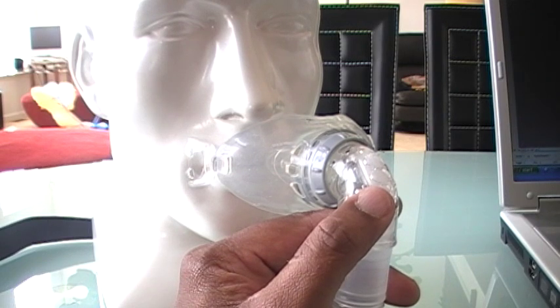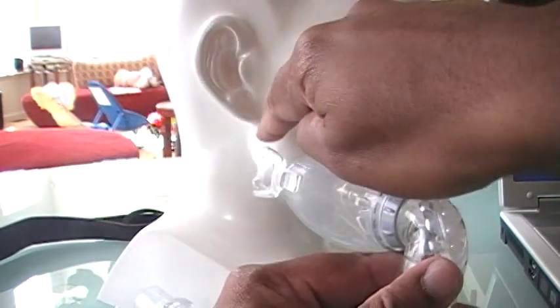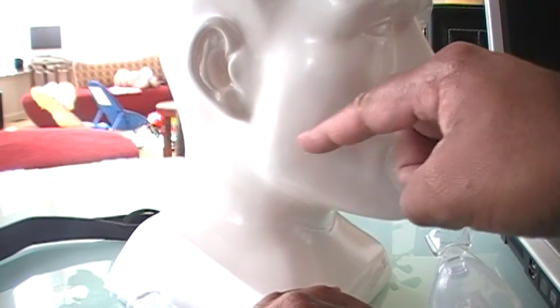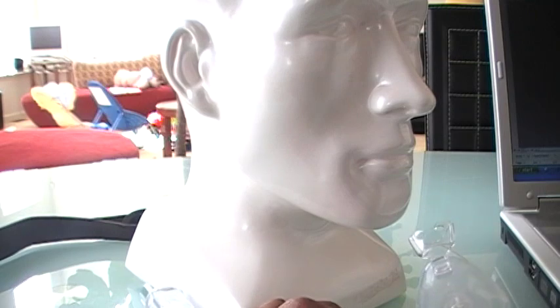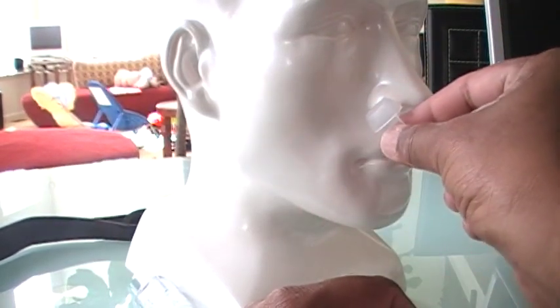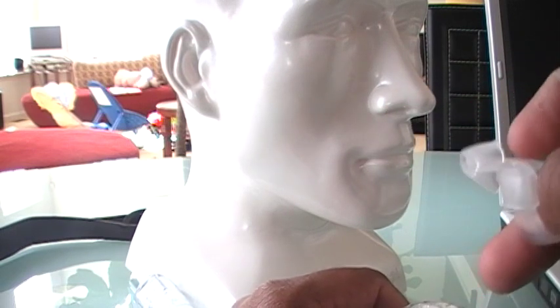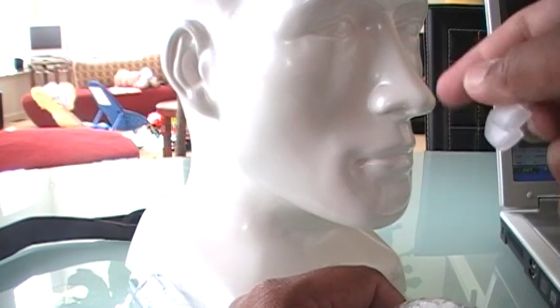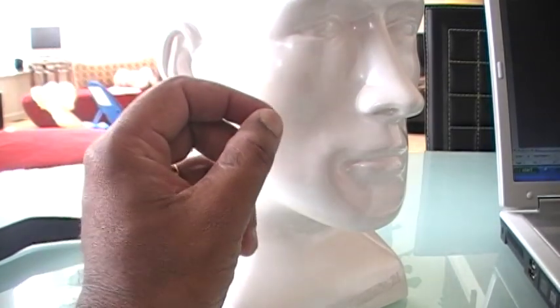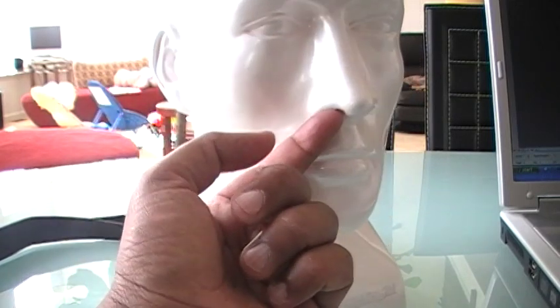Here's another phenomenon that happens with oral masks. There's a term called reverse leak. Depending on how severe your obstruction is, the air that goes in here will bounce off the obstruction and some of it will make a U-turn and come out through your nose. What the company has done is include nose plugs in the packaging that you put into your nostrils. Honestly, I don't think these do a very good job. I've heard better results from patients who went to a sports store and bought the nose clips that swimmers use, or who used foam ear plugs inserted into their nostrils for a better seal.